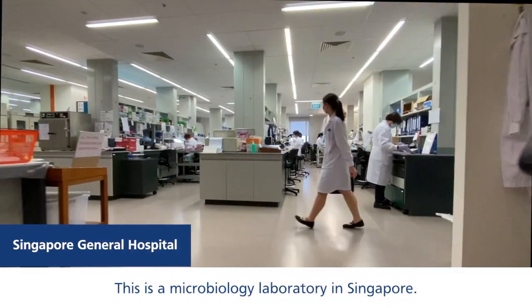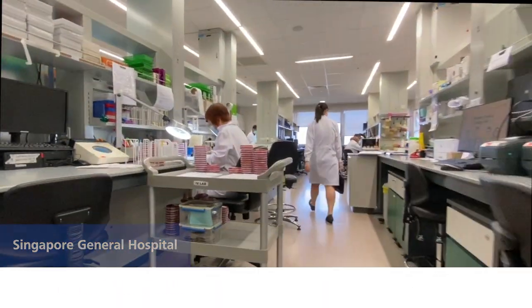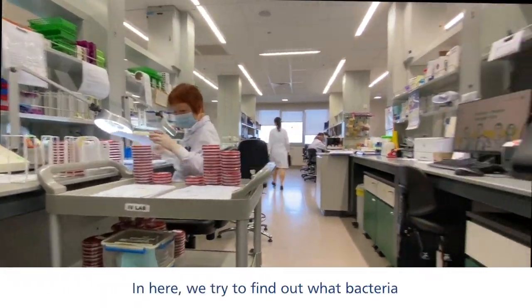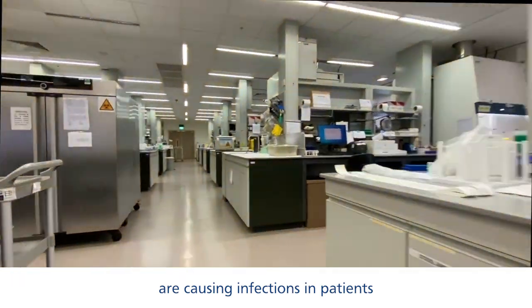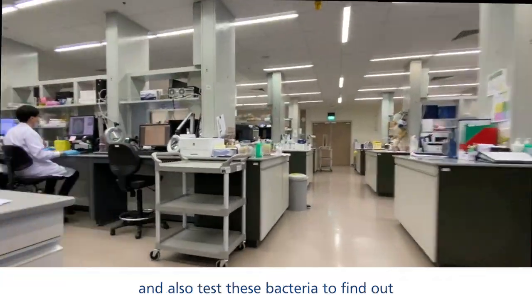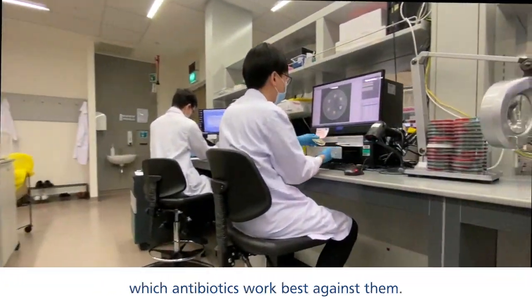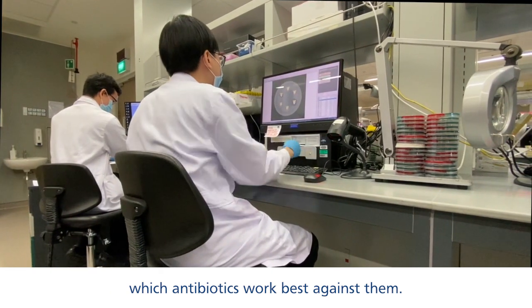This is a microbiology laboratory in Singapore. In here, we try to find out what bacteria are causing infections in patients, and also test these bacteria to find out which antibiotics work best against them.